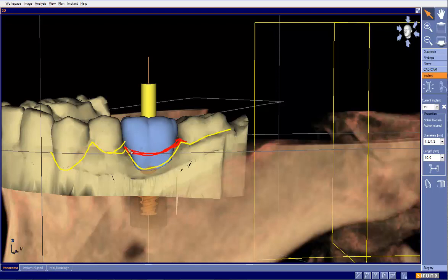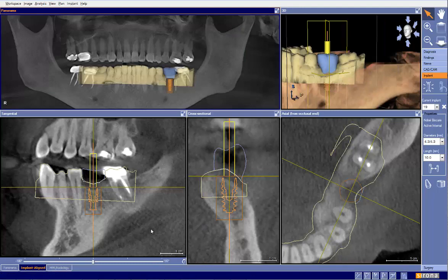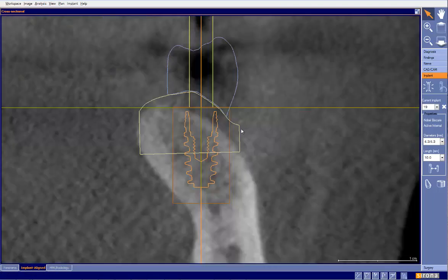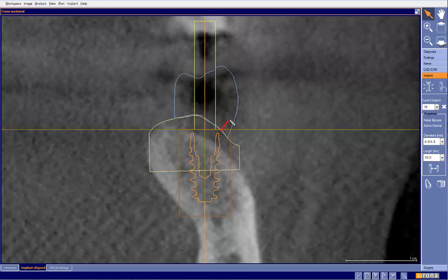Next time we draw these CEREC margins and design our virtual tooth, keep our emergence profile and emergence tissue height in consideration. This becomes more apparent when we go to the implant-aligned cross-sectional view — we can see the implant plan is quite close to the drawn margin, which is incorrect. If I had the margin drawn where it should be, which is probably about right here, we can see our implant head is quite close to that margin and getting our emergence would be quite difficult. That's why it's so important to have that correct.